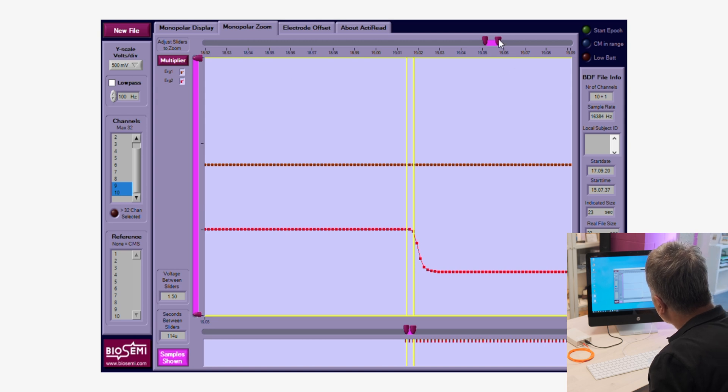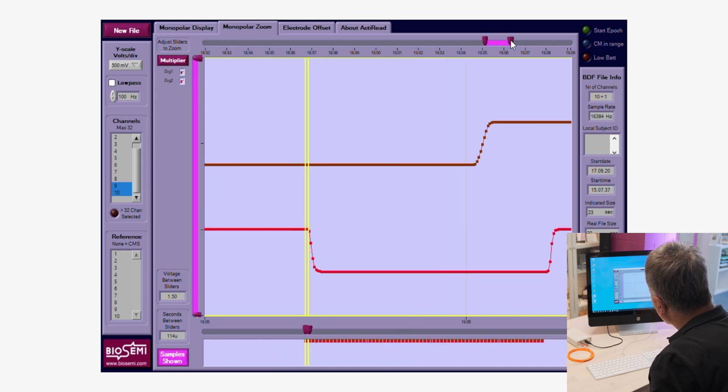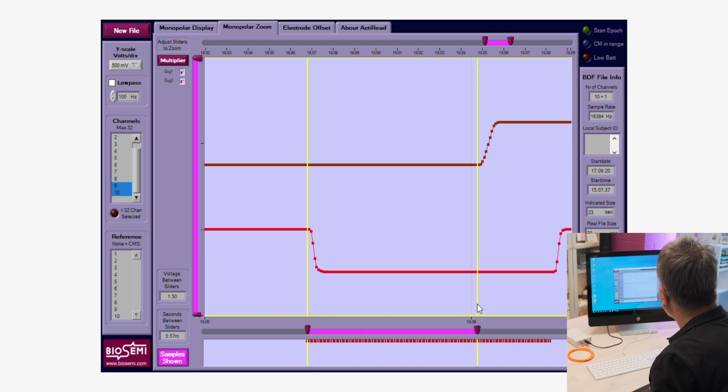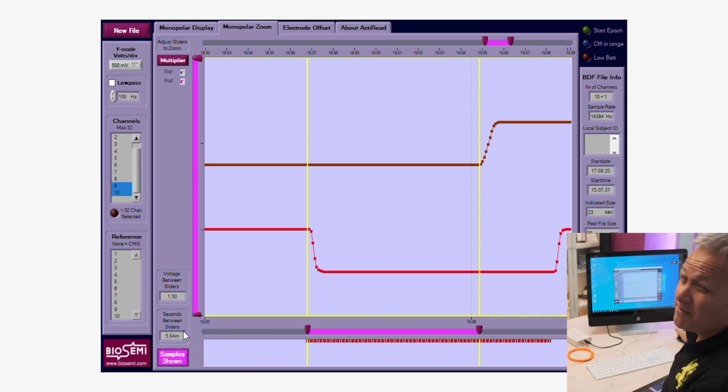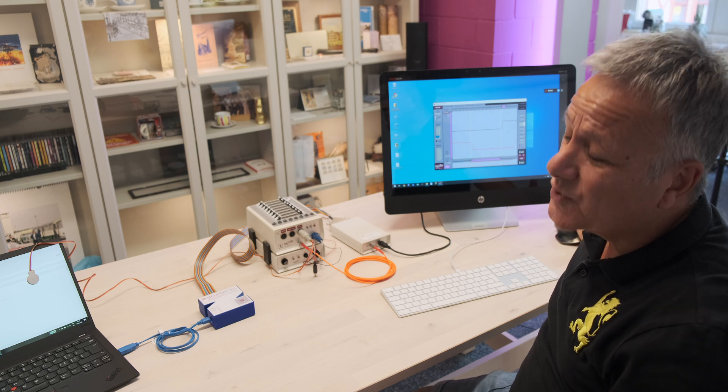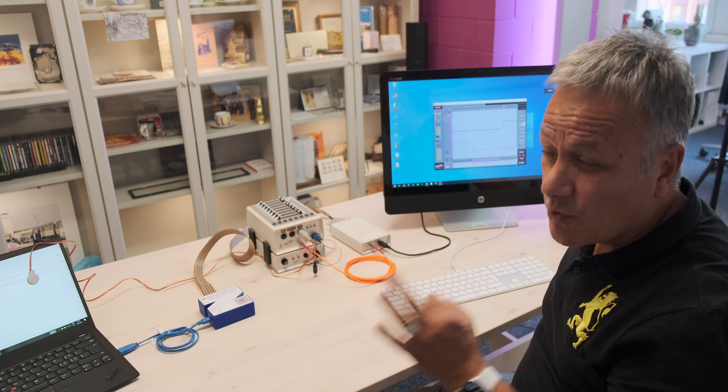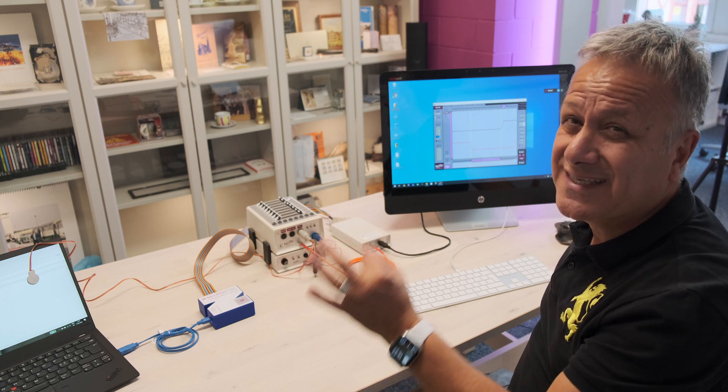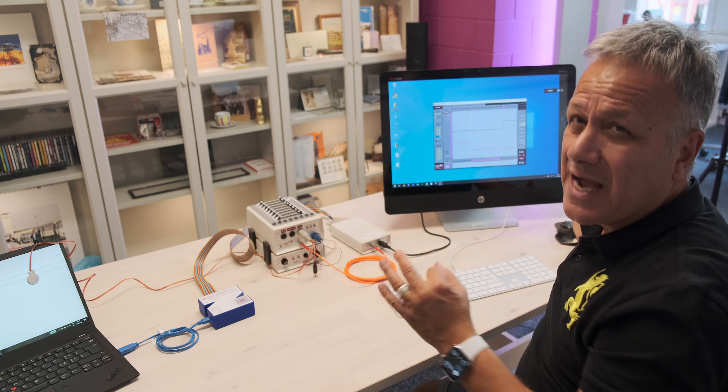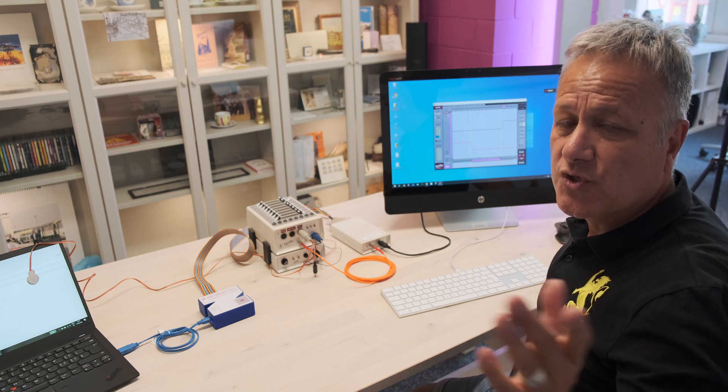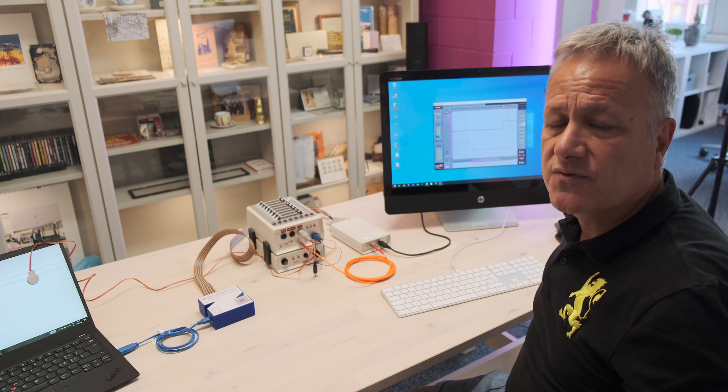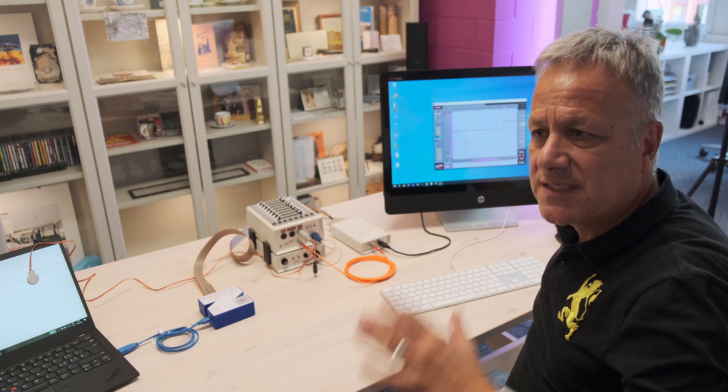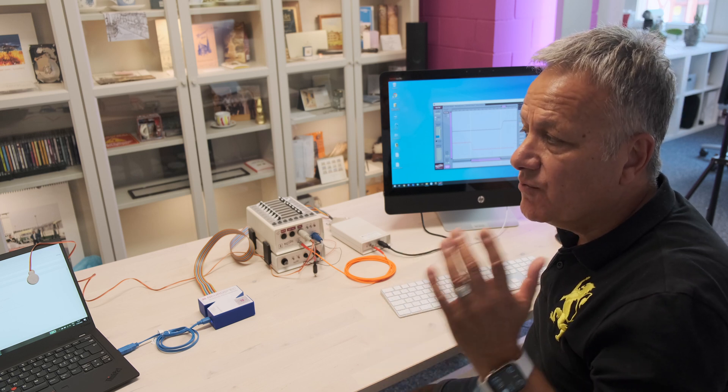Now of course, we can also see when we're expanding a little bit, we can also move the marker to our actual response of the ERG, of the photocell. And we can see here the difference now is 5.5 milliseconds. And this is because I'm using a very fast laptop with good graphic card and so forth. So for the graphic delay, we're only out by 5.64 milliseconds, which can be compensated if you use analysis software such as BESA, so we can see a visual evoked potential or P300 really nicely in time.